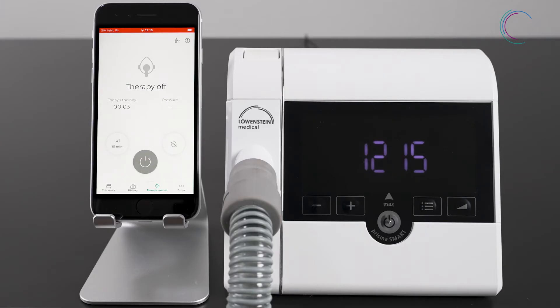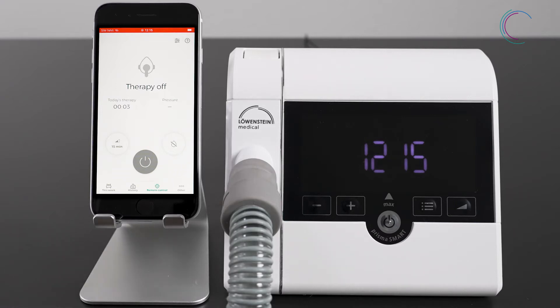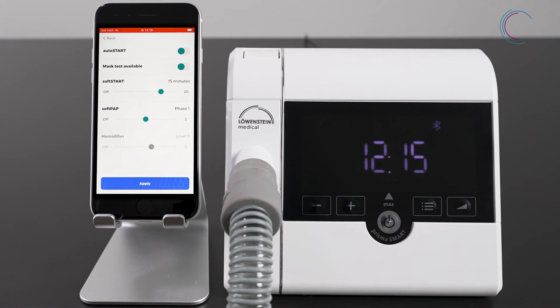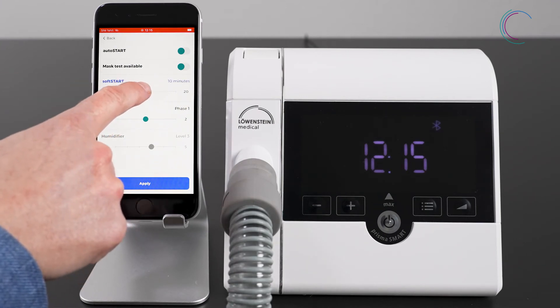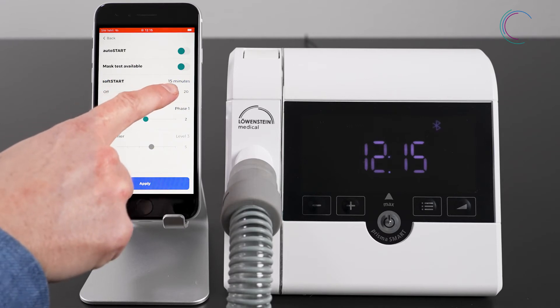Your caregiver or doctor must activate the sleep ramp soft start in your therapy device. To see all comfort features that can be remotely controlled, press the setting menu on the upper right side. Go to the soft start time setting that can be limited by your medical expert and then apply your changes.